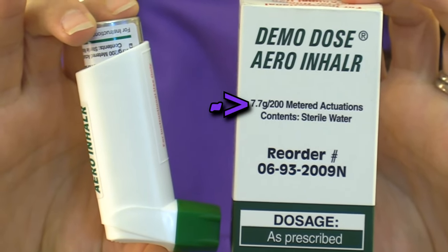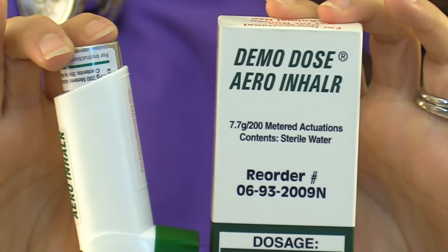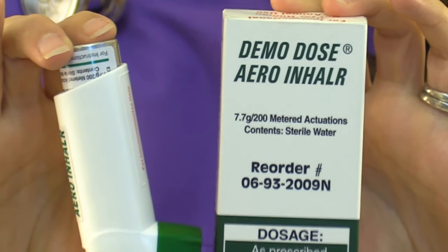When priming, you also want to make sure there are enough doses left in the inhaler, because they only contain so many puffs. Many inhalers have a counter on them that tells you how many are left. If this one doesn't show a counter, the box will tell you how many sprays are in each inhaler — this one has 200 sprays.